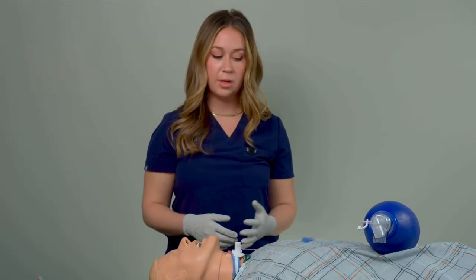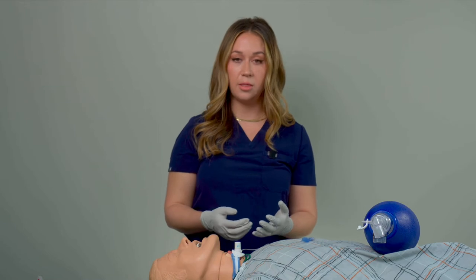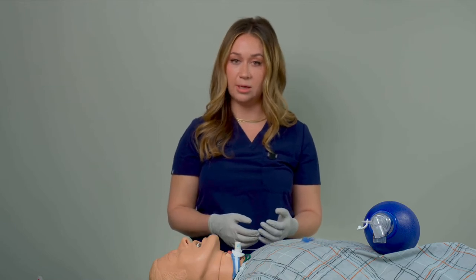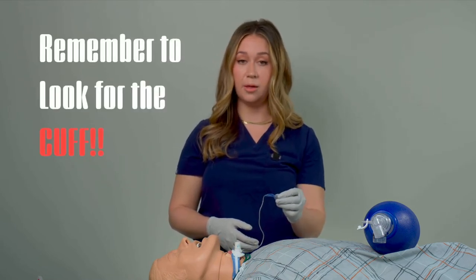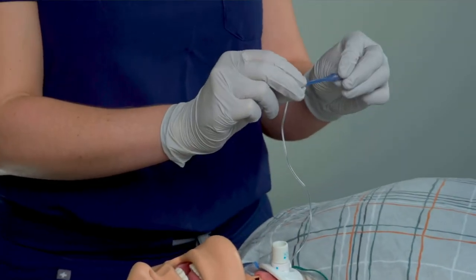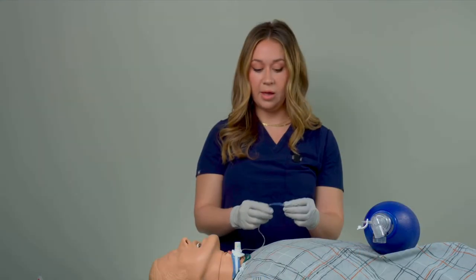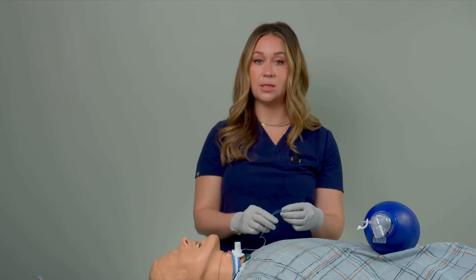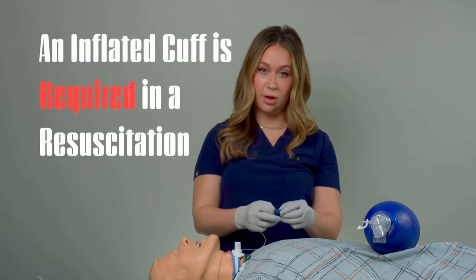The first thing you're going to do when you walk in the room is determine whether or not the tracheostomy has a cuff, and that's based on the pilot balloon here. If the pilot balloon is flat like it is here, that means the cuff is not inflated. But if the tracheostomy has a cuff, then you know it can be used as an emergent airway.